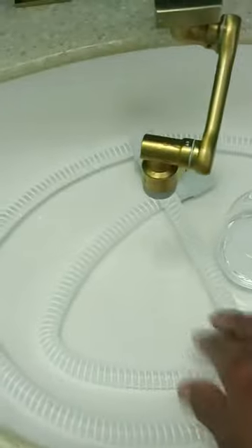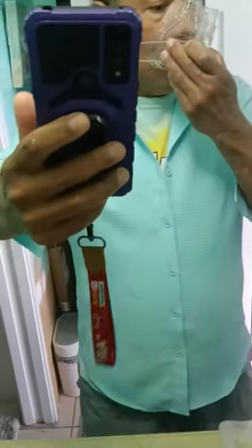This thing's great. When this was filled up with blue water, I was using this glass to pour the solution through. So far it worked pretty good. It removed all the oils. There's no after smell. There's no scent at all, really.